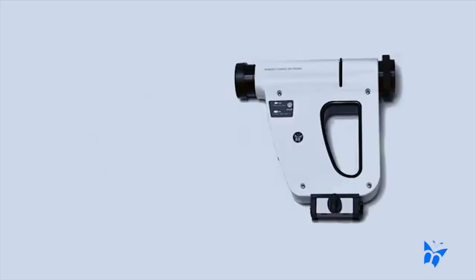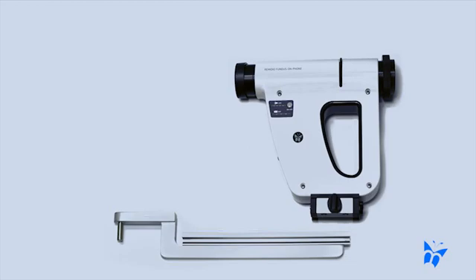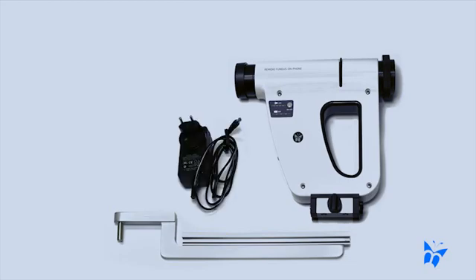The foam bag includes the FOP device, the slit lamp attachment feature, a power adapter, and a universal phone holder.